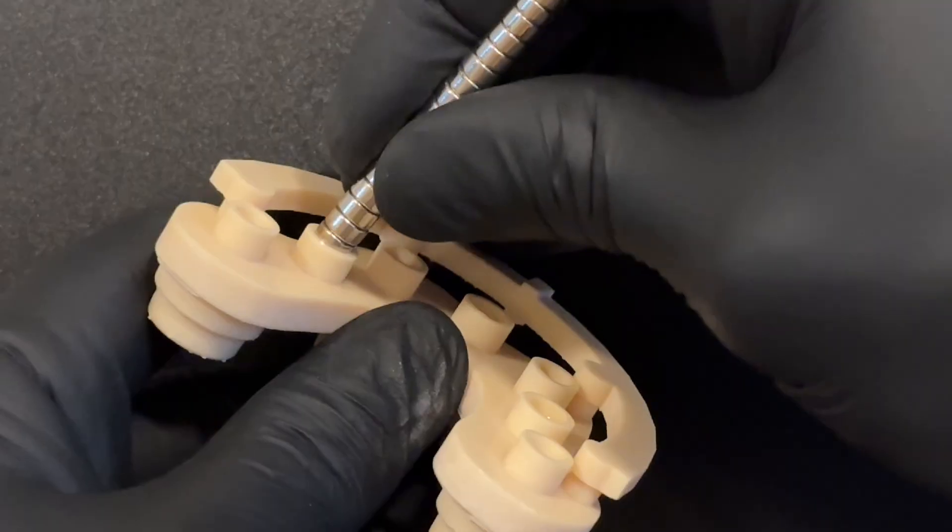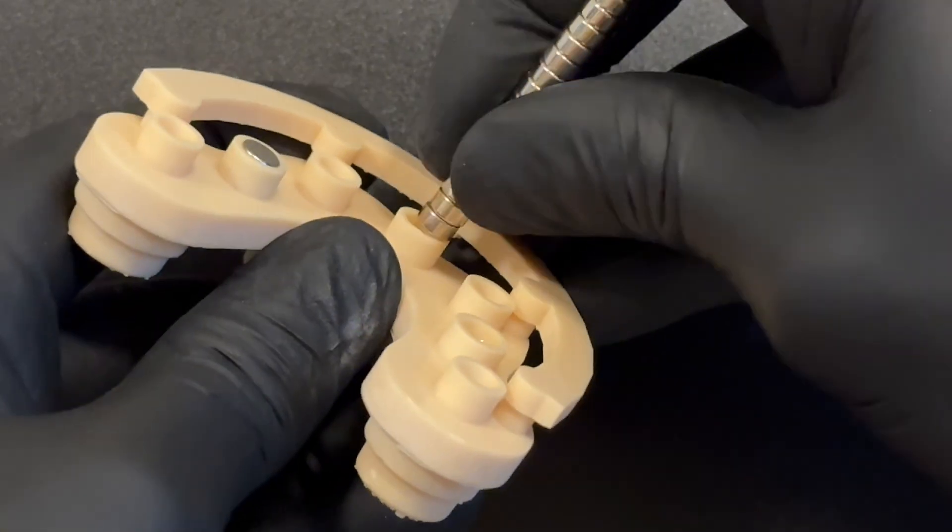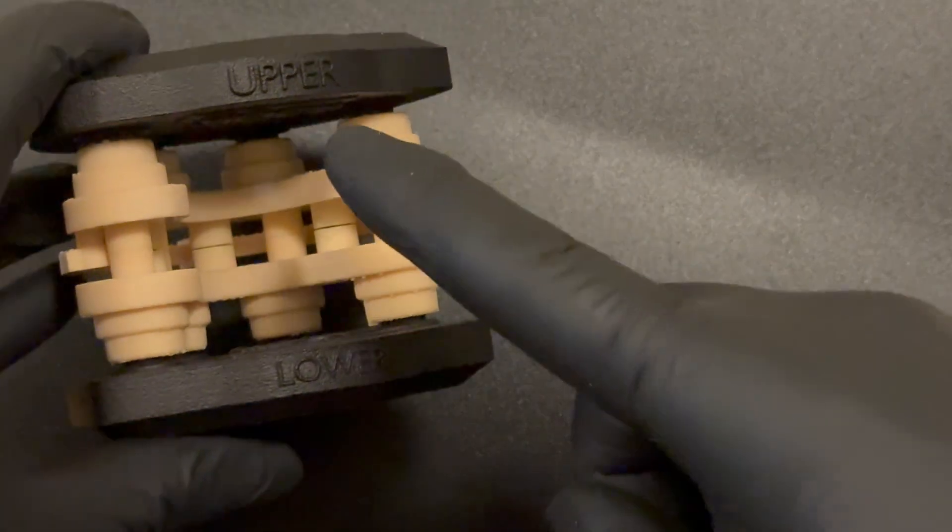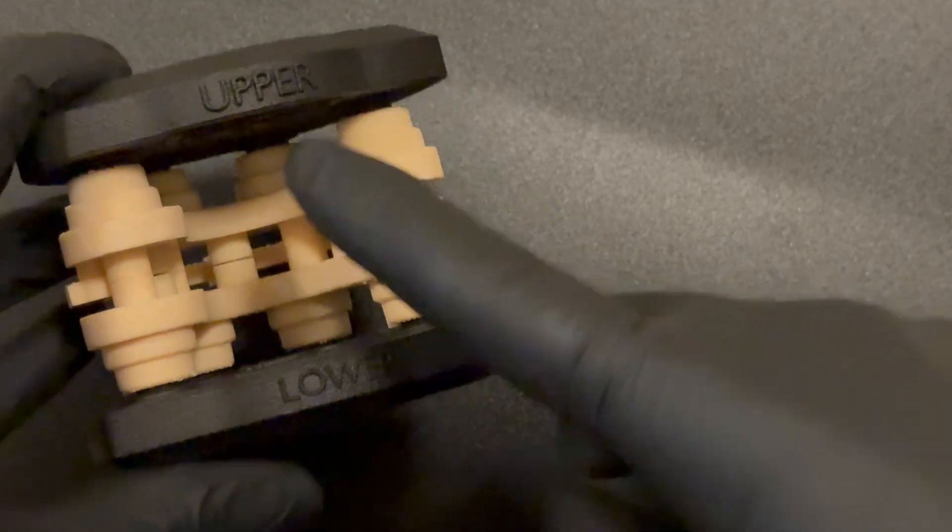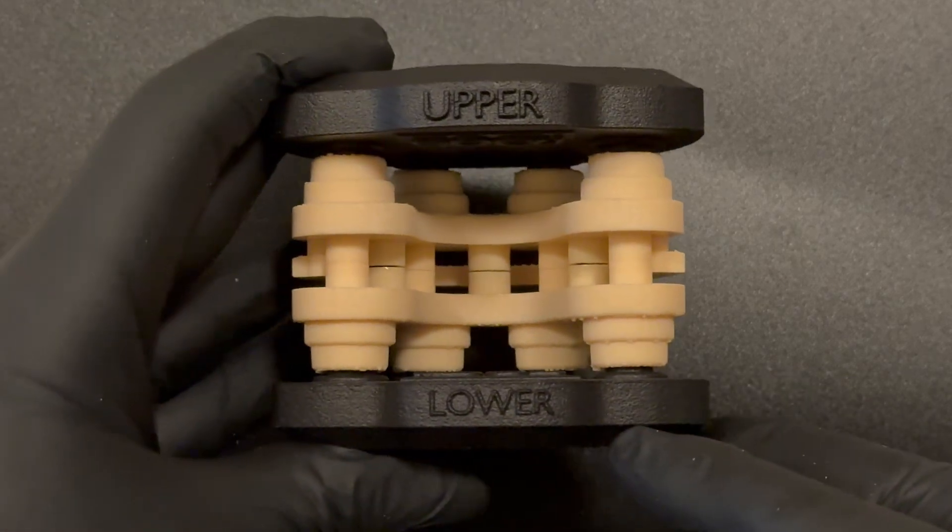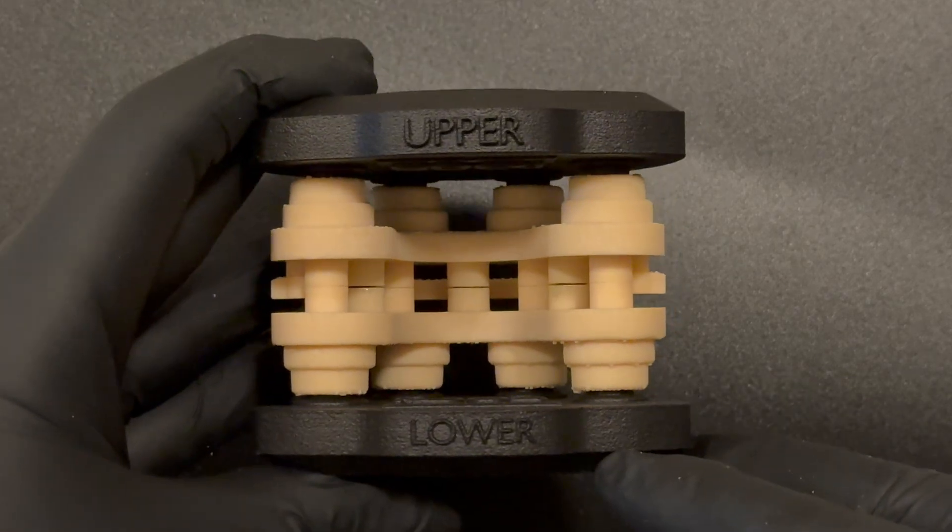Once the master calibrators are ready, you can begin installing the DACOS plate. The DACOS plates are labeled to differentiate the upper and lower plates. You can find the respective upper and lower markings on the back of each plate, ensuring they're not mixed up during installation.